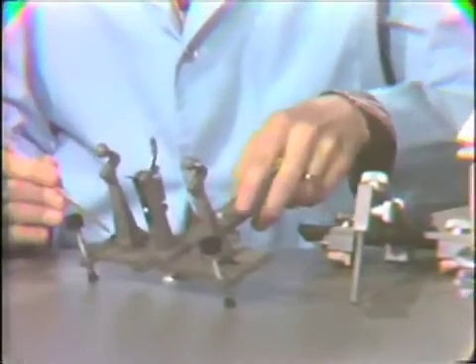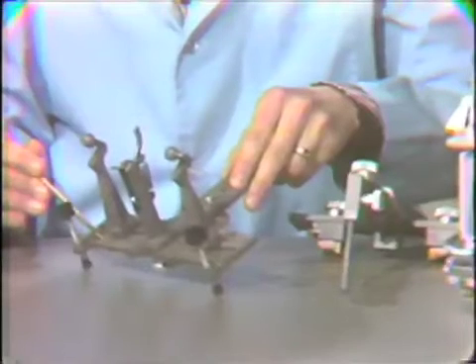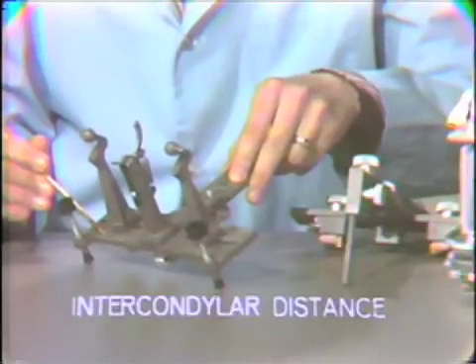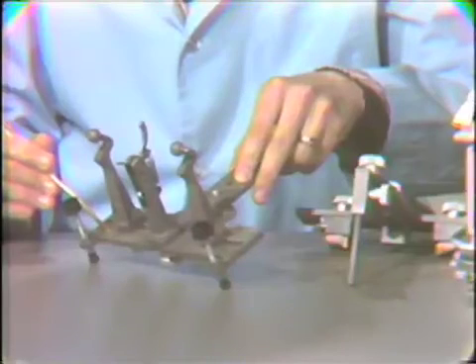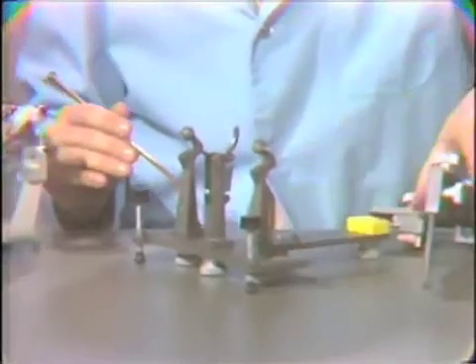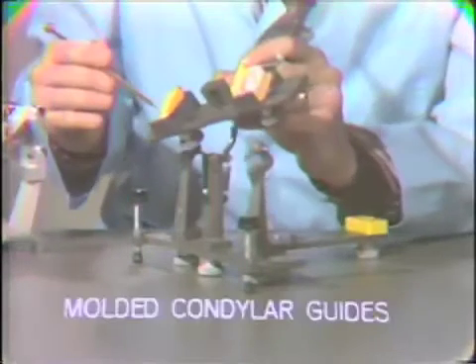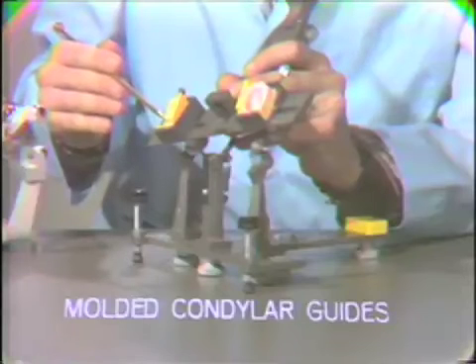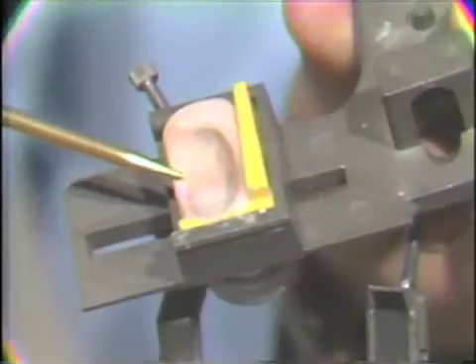As far as the other settings of the articulator, it's fairly straightforward. It has the capability of an adjustable intercondylar distance, as with other fully adjustable articulators. And all the rest of the settings are set with the molded acrylic condyles, or the molded condylar guides, as you can see here.